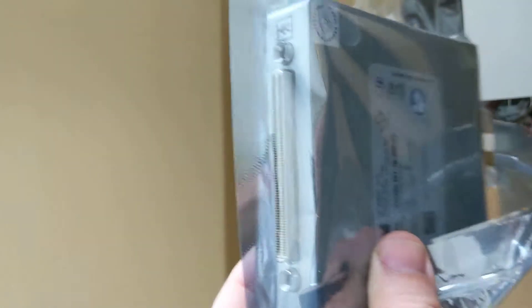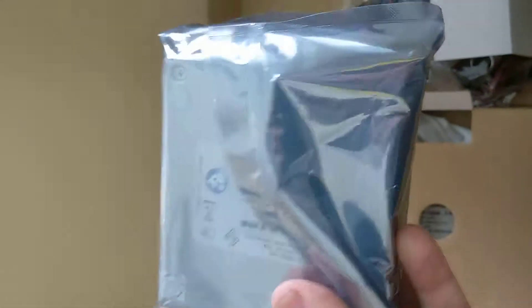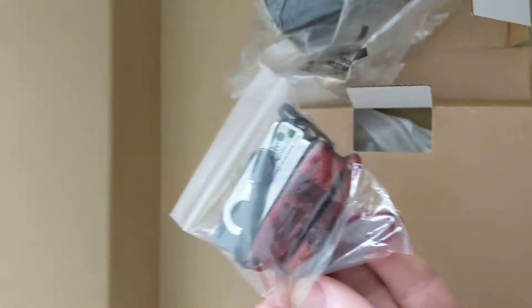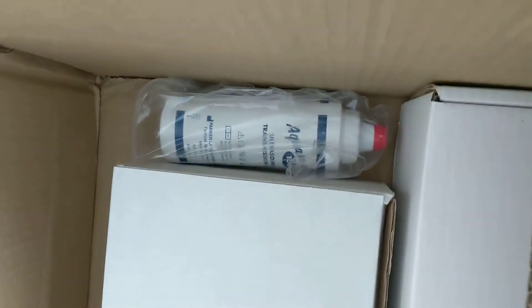I'm going to have a small mysterious metal thing with a big input-output. I'm going to guess this is the snazzy little ultrasound unit that does all the work. So we have various software keys, plugs for stuff, appropriate cabling. And ooh look, ultrasound gel. Thanks very much.